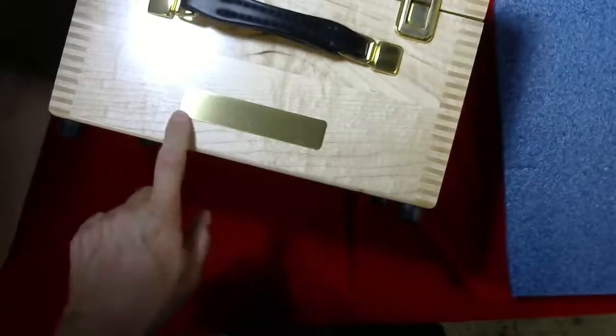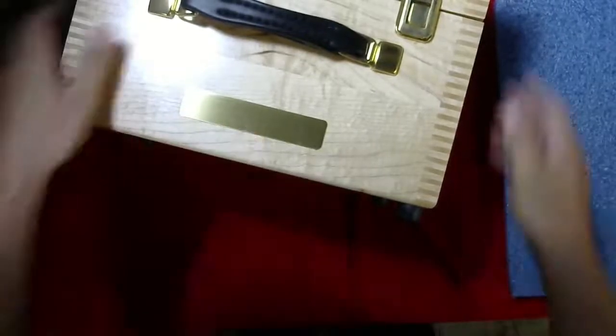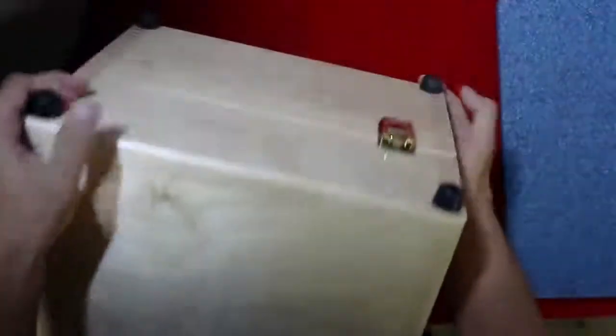The Phantom Laboratory in Salem, New York, USA. As you can see, it's a nice wooden case to protect your investment. It has feet on the bottom, and I will open it up. It has two clasps on the side.